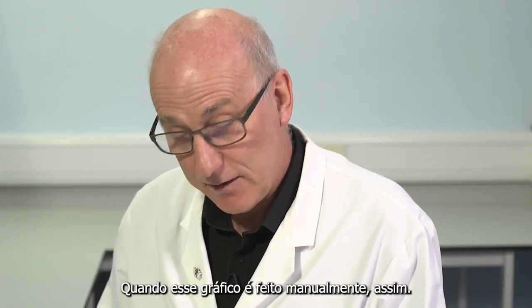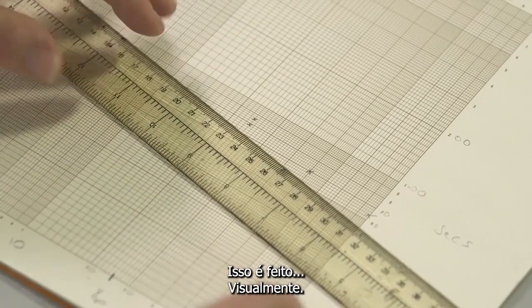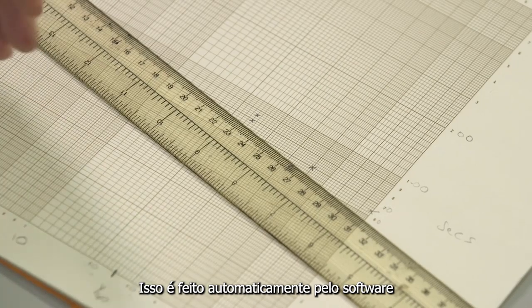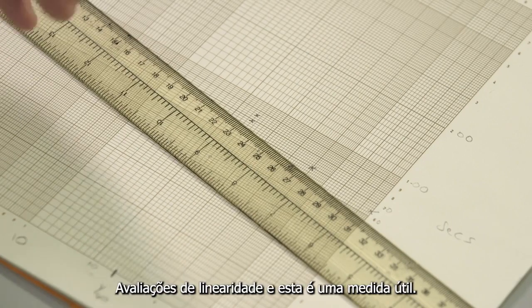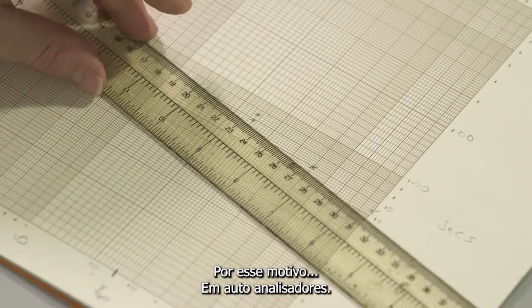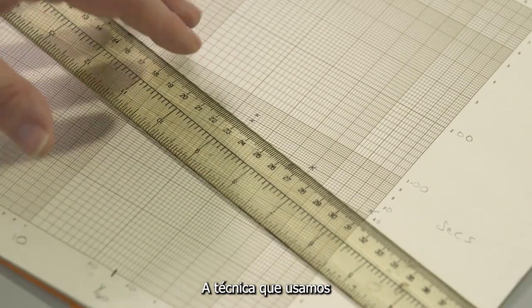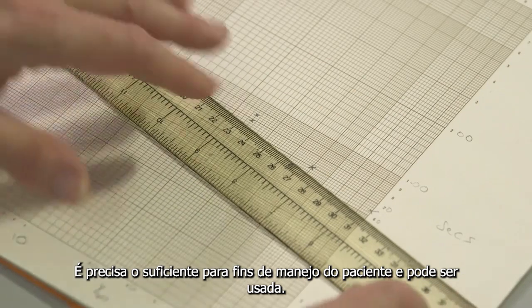So when this plot is made manually in this way, on graph paper, this is done visually. Of course, on an autoanalyzer, this is done automatically by the software, and on most autoanalyzers there are assessments of linearity, and this is a useful measure, and there's an advantage to run such assays for that reason on autoanalyzers. Nevertheless, the technique that we've used is precise enough for patient management purposes and can be used.